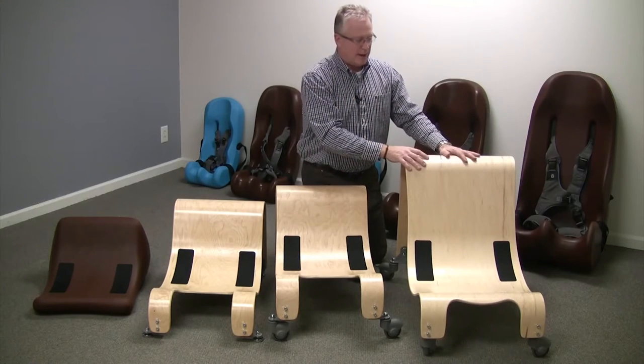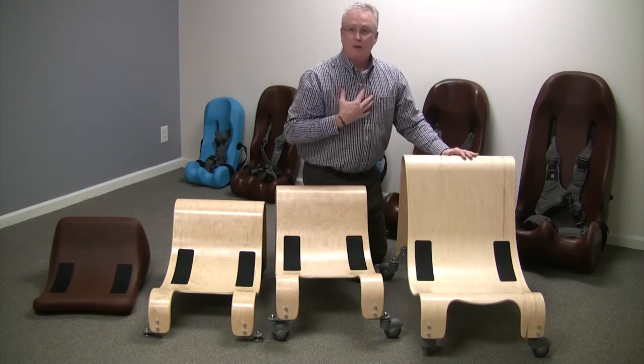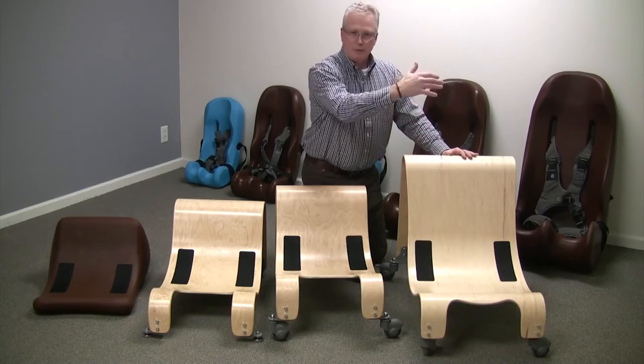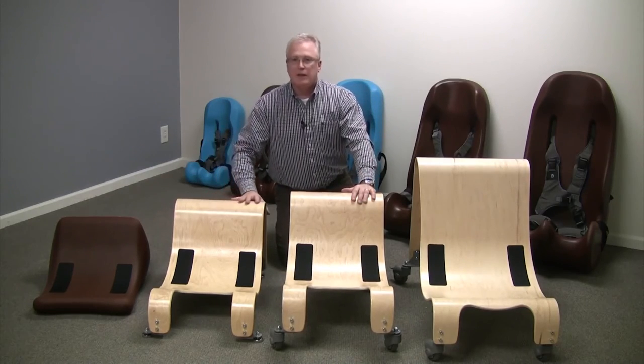The clients that can use this can range from around age 13 to an adult — this would actually fit me as well. We have a tendency to be a little bit more top-heavy, so it gives it a real firm footprint. All of these come with a five-year warranty, and they're made in the United States.